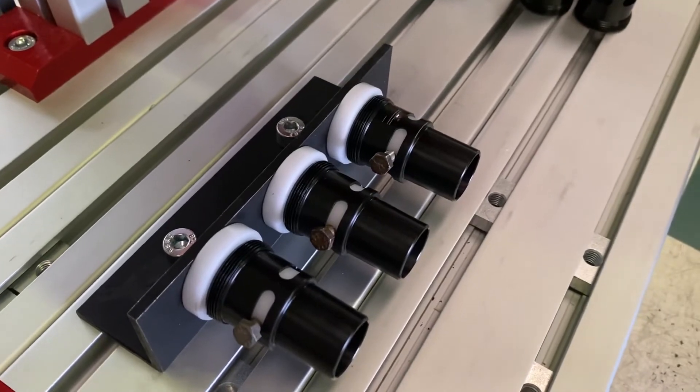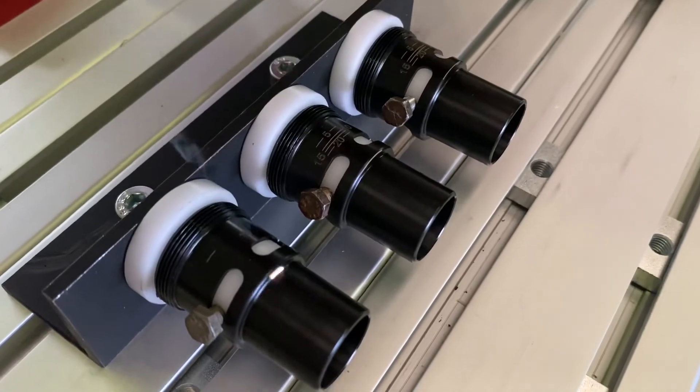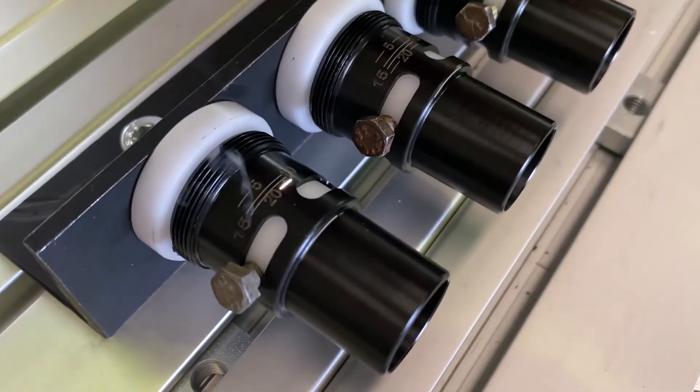Now, of course, we knew one Peep Valve size would not serve everyone, so we developed two different inlets, a 22mm and a bigger 30mm one, creating a universal range of products, being able to match any respirator device.